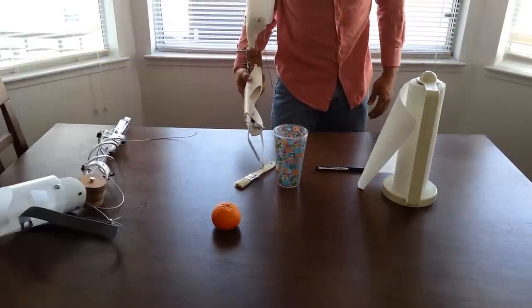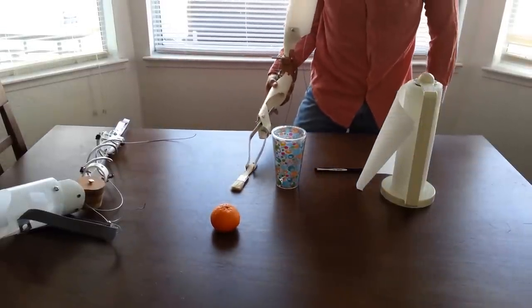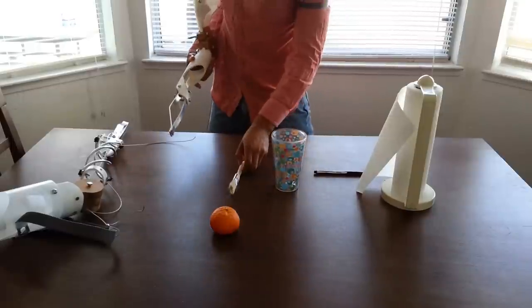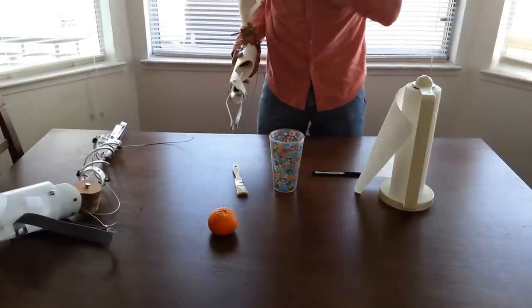Then you can grab small items like a brush. Yeah, you get the point.